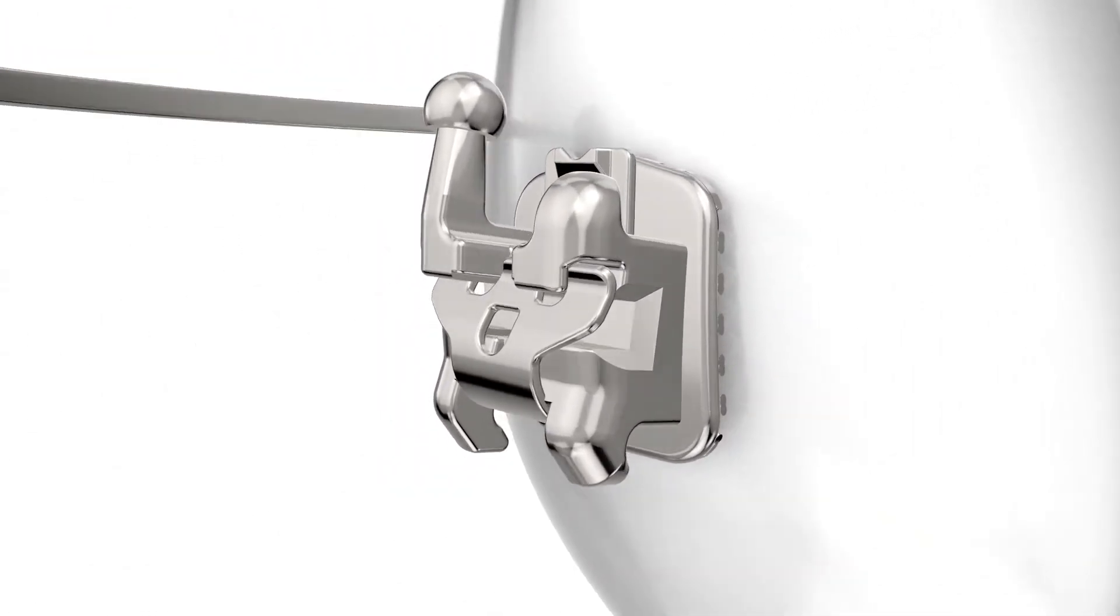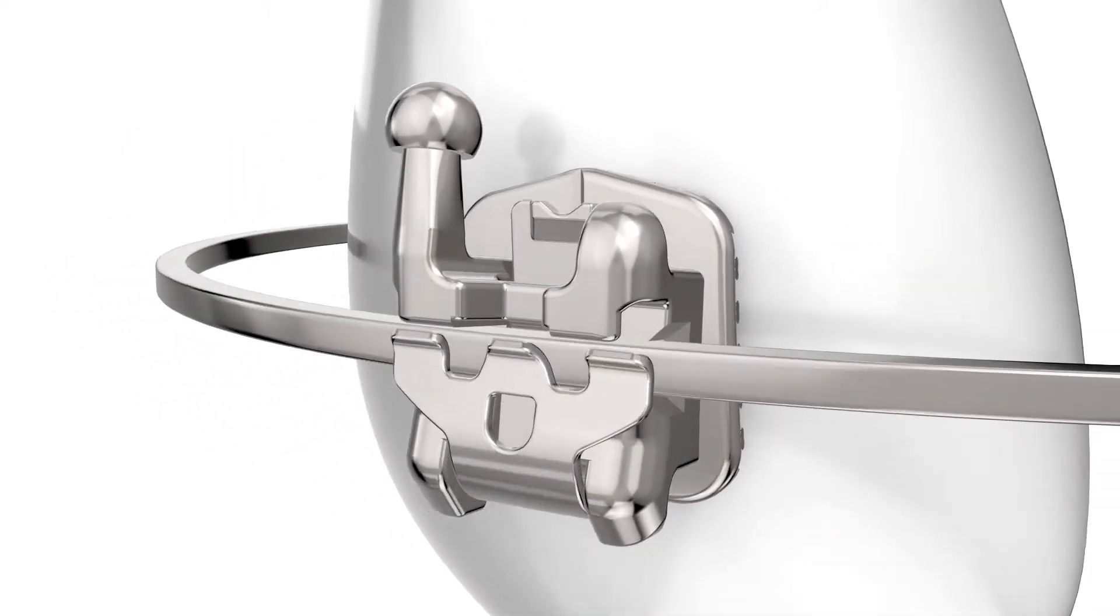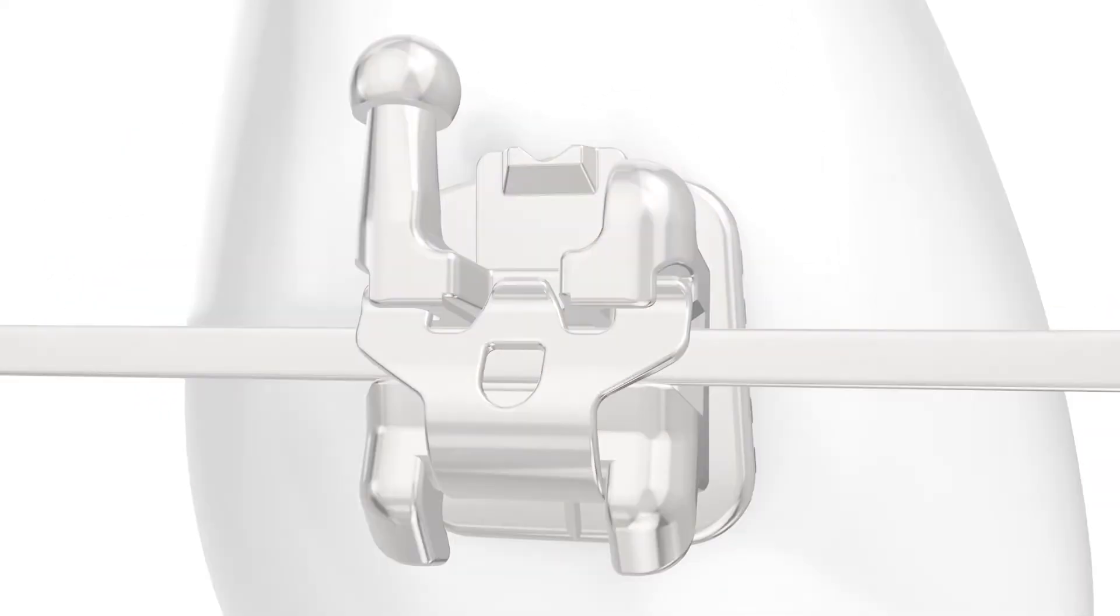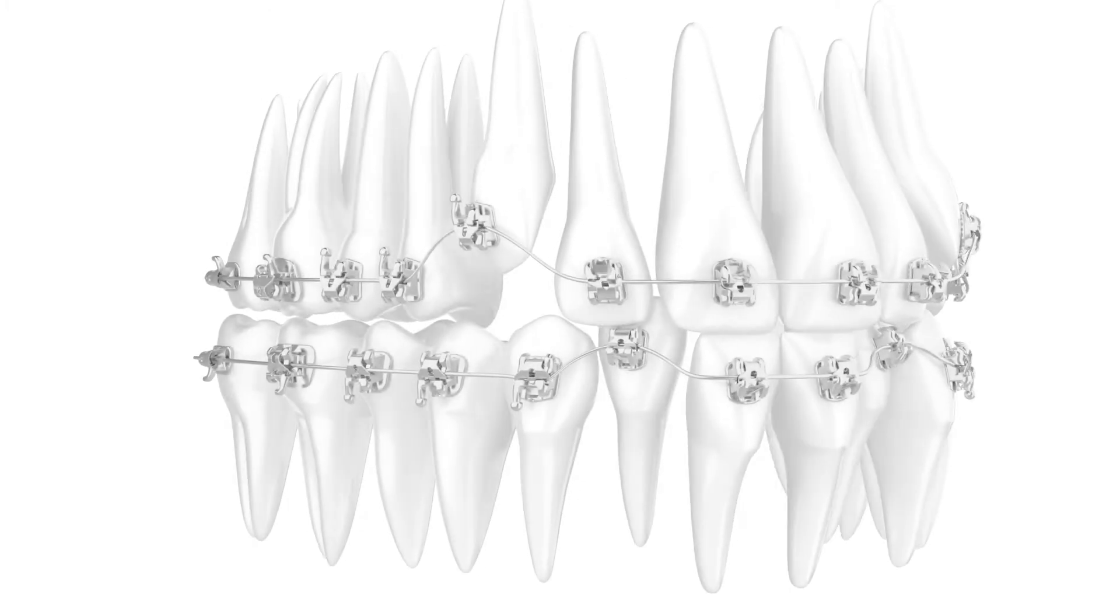Combined with the use of high-tech wires, Empower allows lower, continuous forces to move your teeth gently yet efficiently compared to traditional braces and higher force wires.